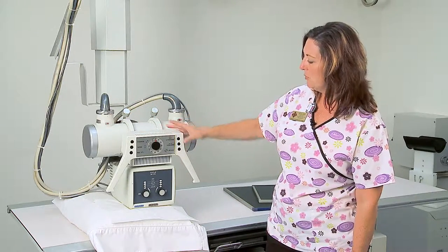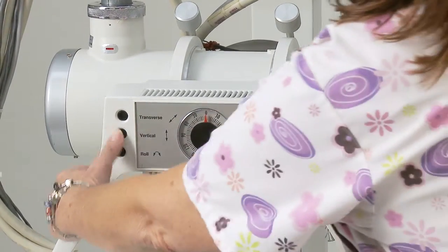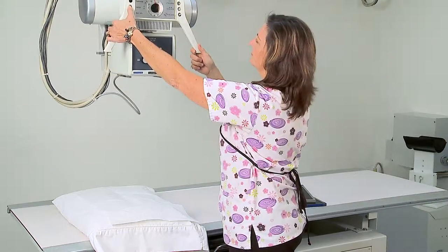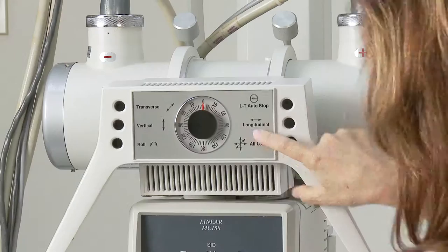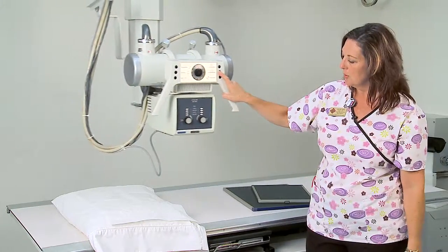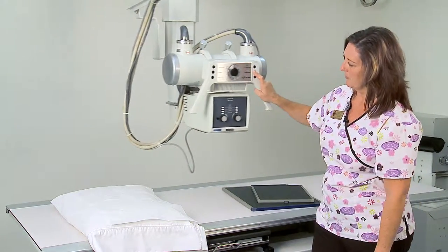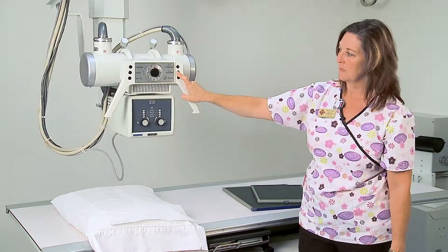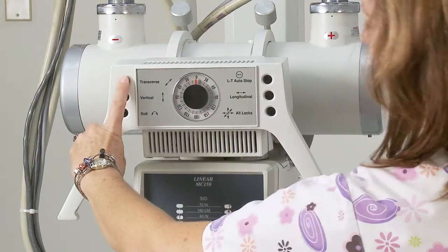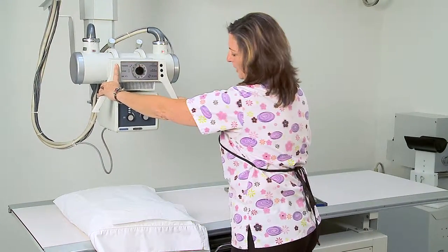In order to move the x-ray tube, if you press the vertical button the tube will go up and down. If you press the longitudinal button the tube will go along the table. The transverse button will enable the tube to go back and forth across the table.